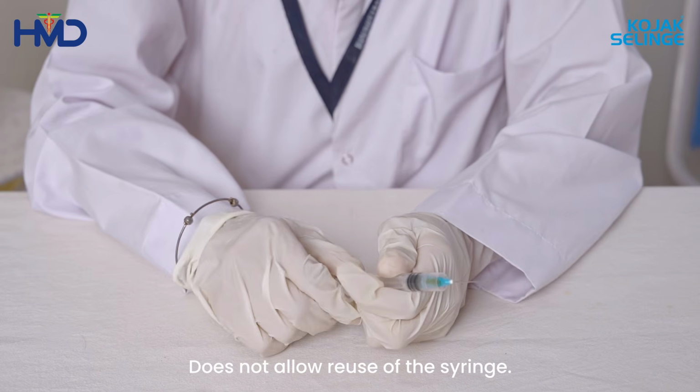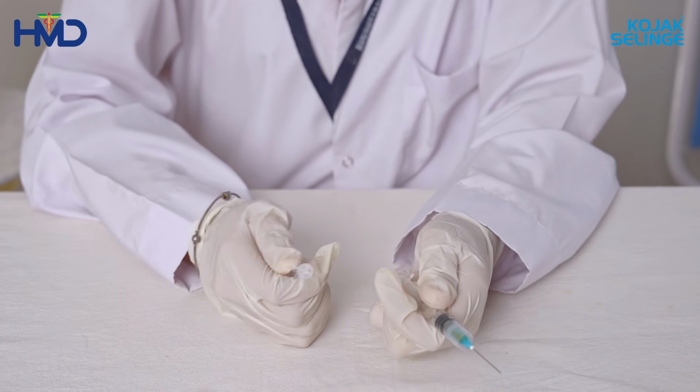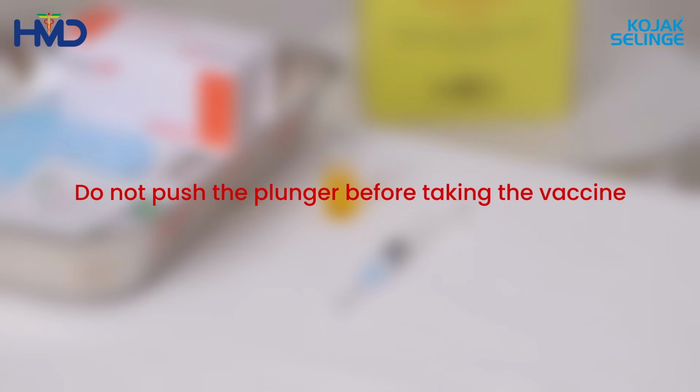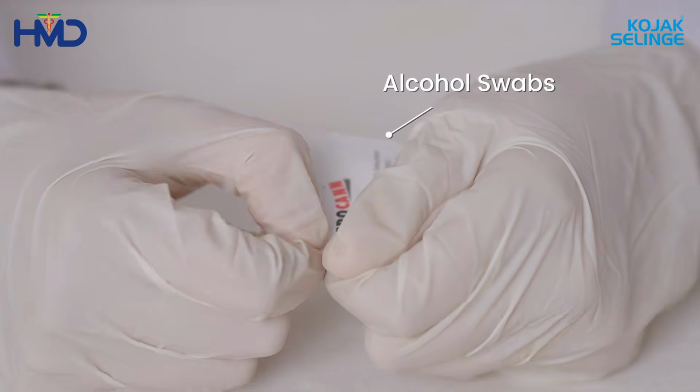After the first injection, the plunger gets locked, rendering the syringe unusable. Discard the used syringe components in the sharps container. Before giving the vaccine, make sure you have a new Kojak syringe, vaccine vial, alcohol swab and a sharps container.